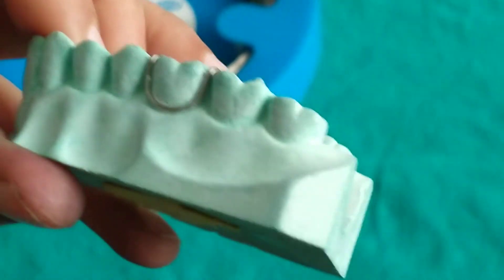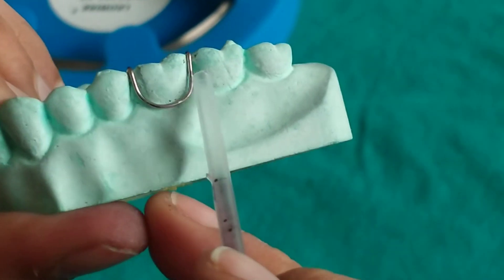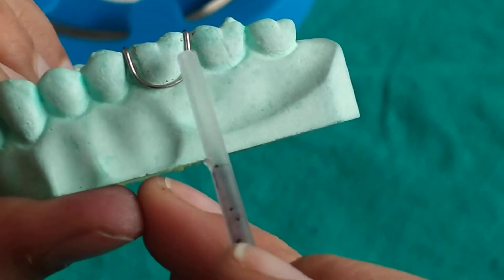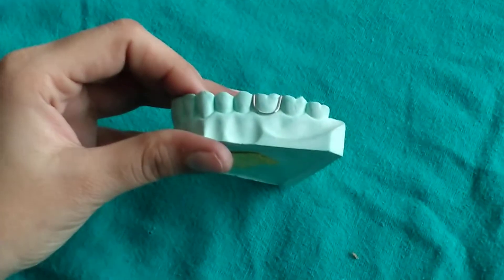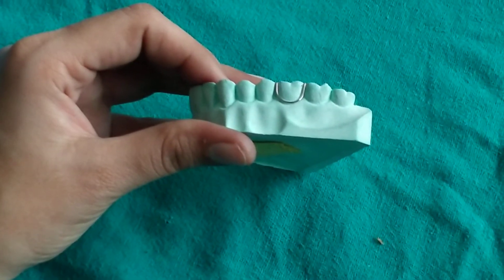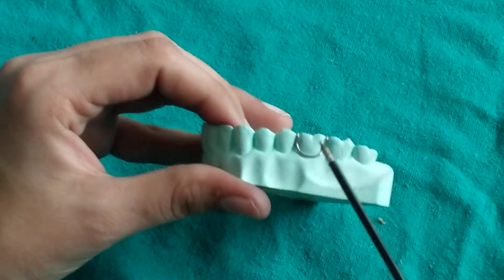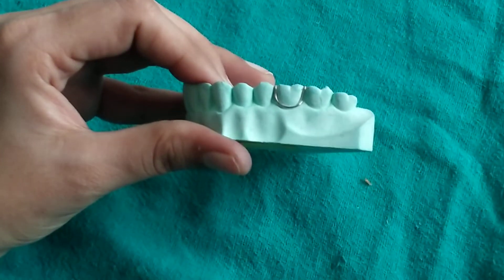You can see that this U-clasp engages both the mesial and the distal proximal undercut and passes through the bucco-cervical prominence. The advantage of this U-clasp is that it is relatively easy and less complex in design. The disadvantage is that the U-clasp cannot be adjusted, and the second disadvantage is that since it engages below the bucco-cervical undercut, it can only be used in fully erupted teeth.